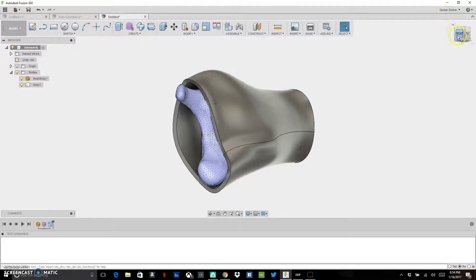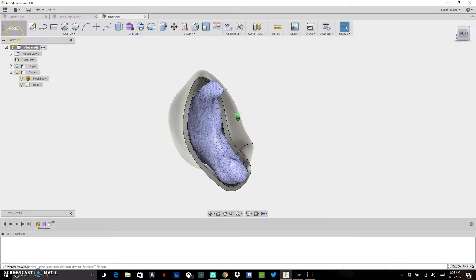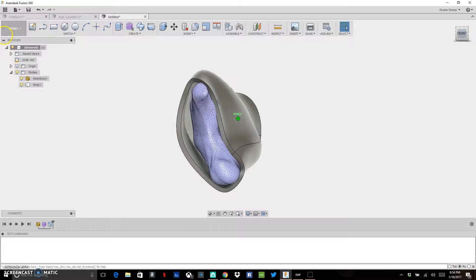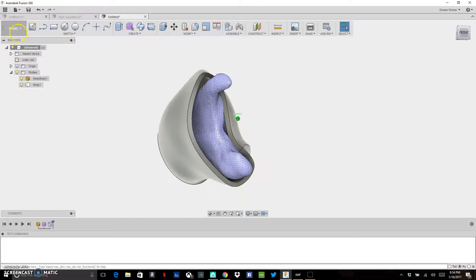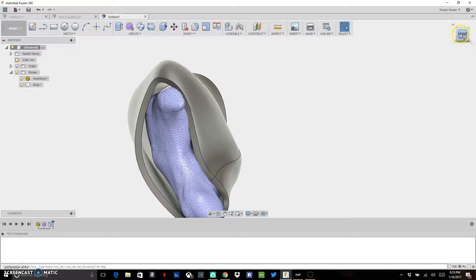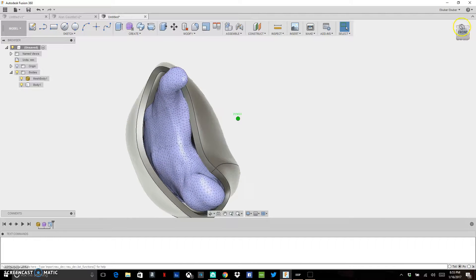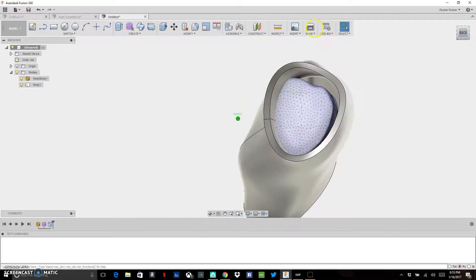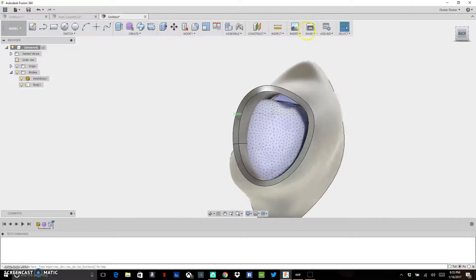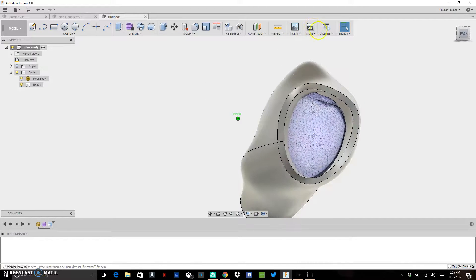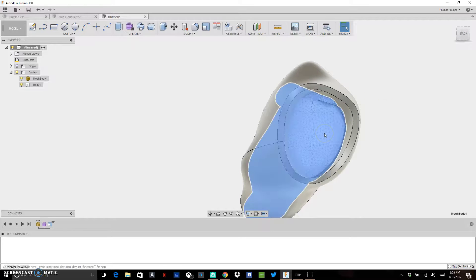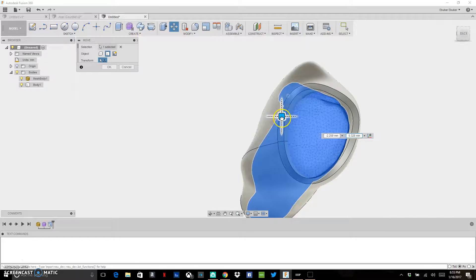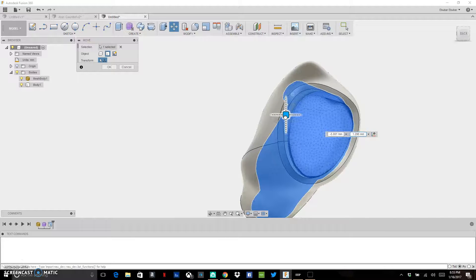If I look at this now, I can see I have a very good fit in some areas, not so good in other areas. That was mainly due to the speed that I tried to do the fitting at for getting my initial model out. But I have a reasonably good fit in glove to go around this particular recipient's hand. I can move this hand around on the inside to give you an idea.